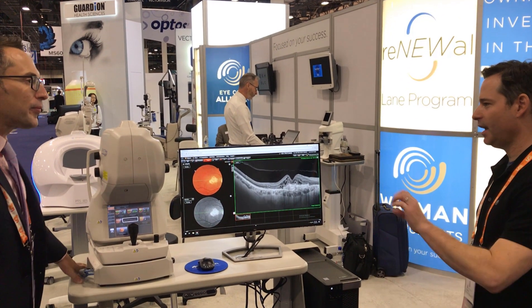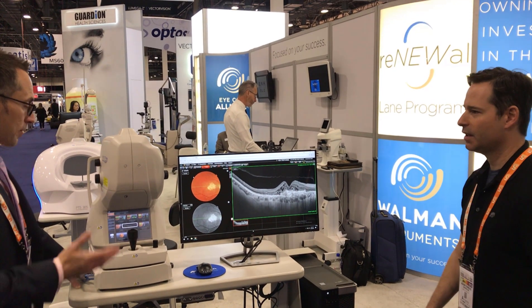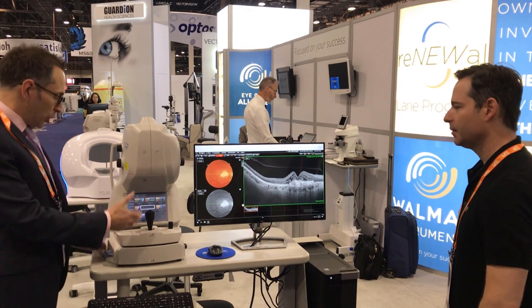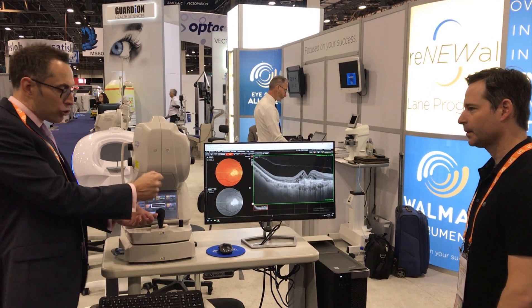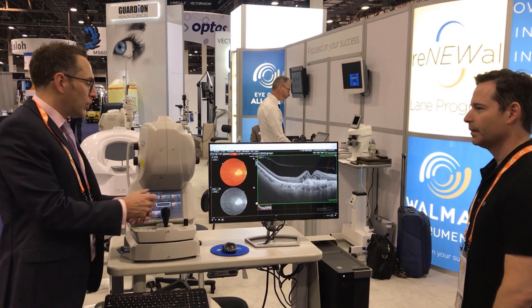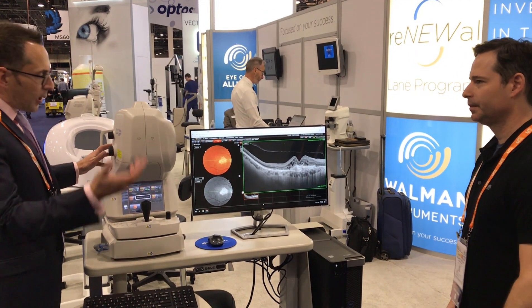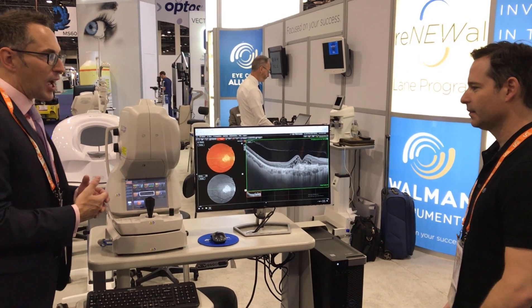How long does the scan actually take, and how difficult is it relative to other devices? Extremely easy — really extremely easy. Point and shoot, joystick driven. We literally drive in like a standard fundus camera and press the button. 100,000 A-scans per second — we capture a lot of data in that time.